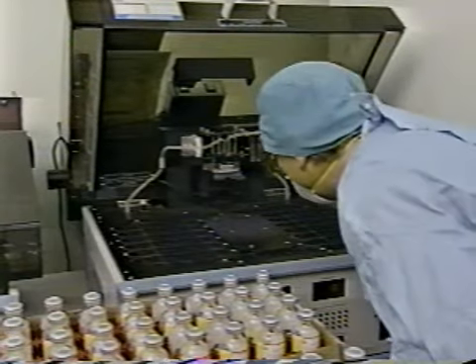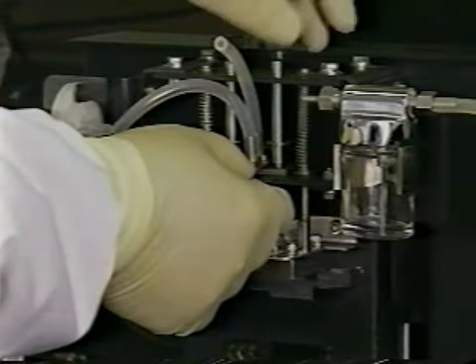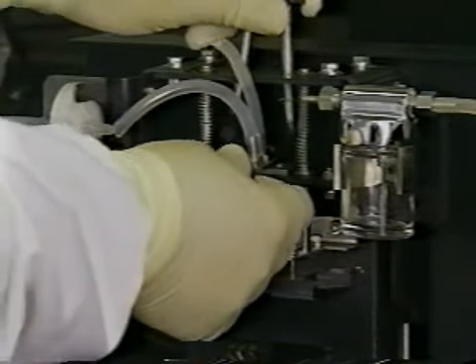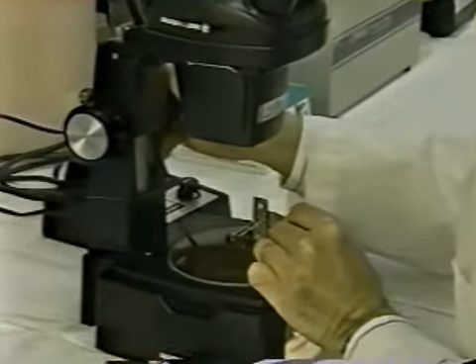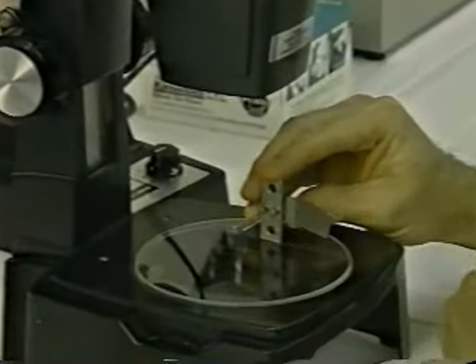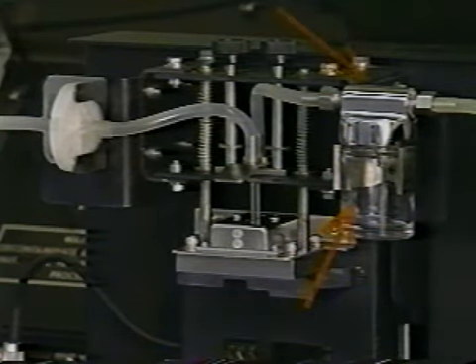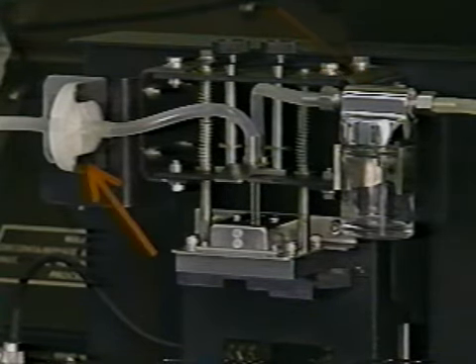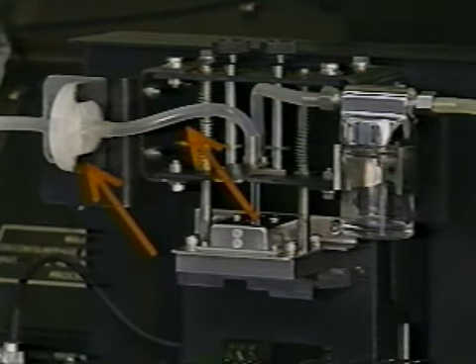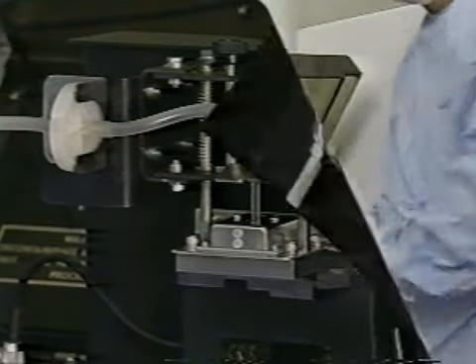This situation shows a problem that can occur when testing. Needles should be changed daily. Be certain they have been cleaned, inspected for burrs and other imperfections, and autoclaved according to manufacturer's recommendations. Make certain the media trap is installed correctly. Newer models of the Bactec 460 have directional arrows to show proper alignment of the trap. The trap, filter, and tubing should always be kept clean and changed periodically as recommended by the manufacturer.